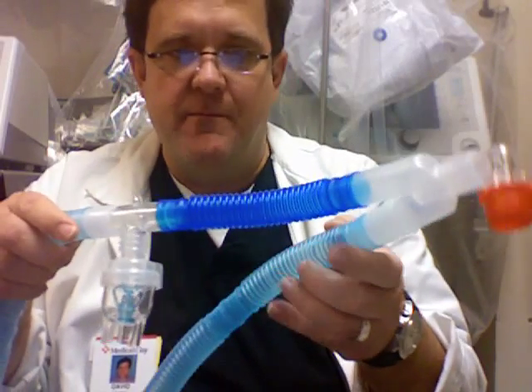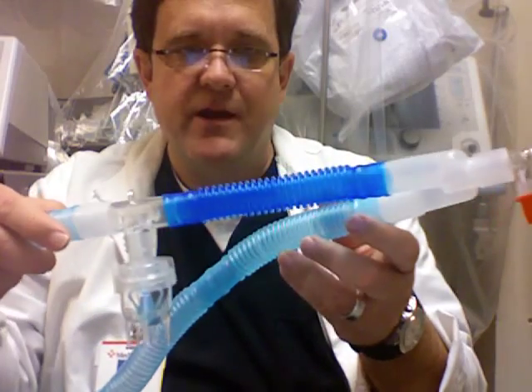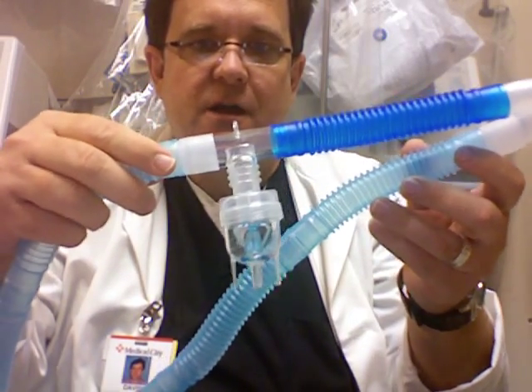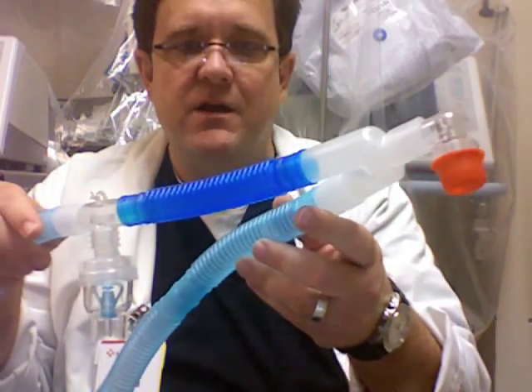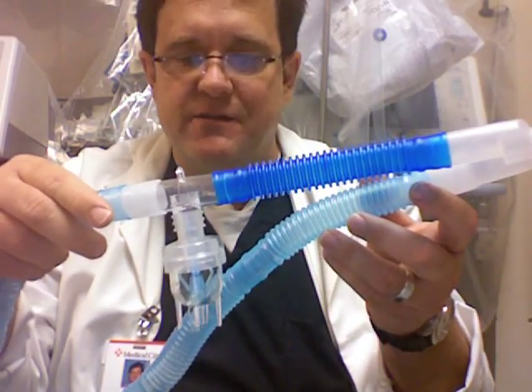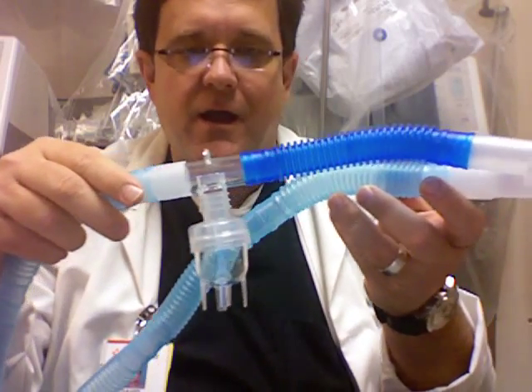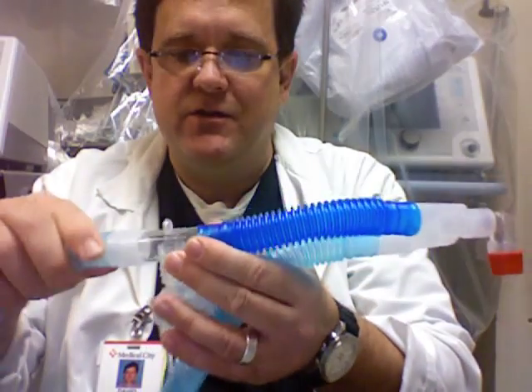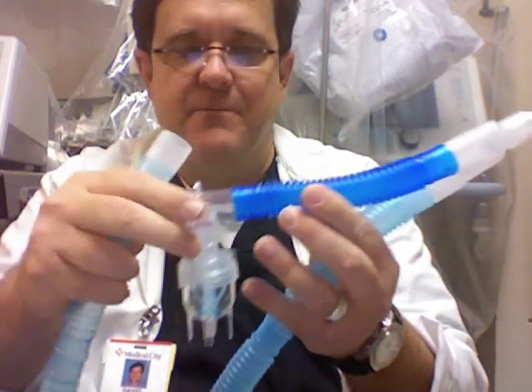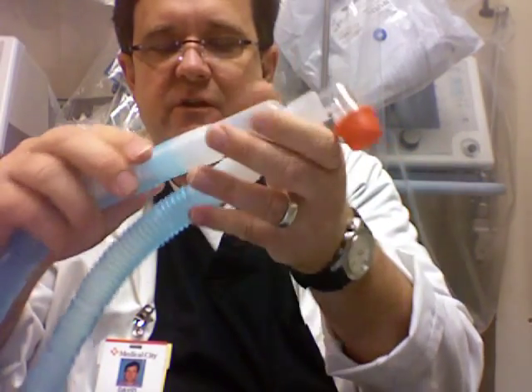Here's a common problem: adapting a nebulizer for a ventilator patient. One way to do it might be to put the nebulizer before the Y, although some data suggests that the further back you put the nebulizer on the inspiratory line, the better. You can see this nebulizer has a Briggs T-type adapter, and an extra piece of blue tubing is used to connect it.